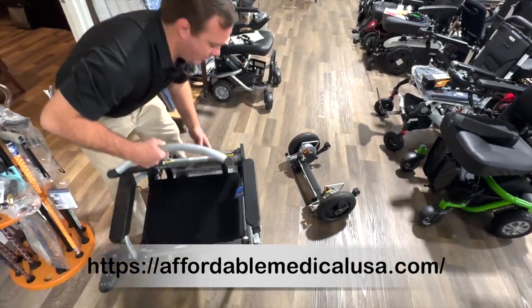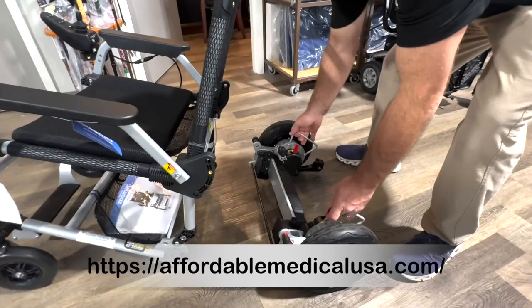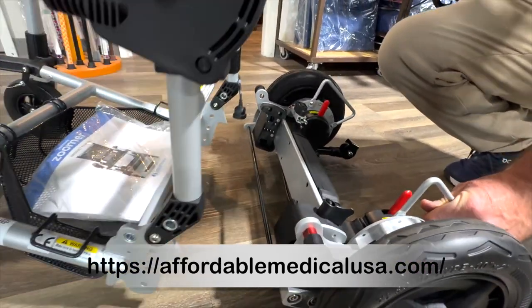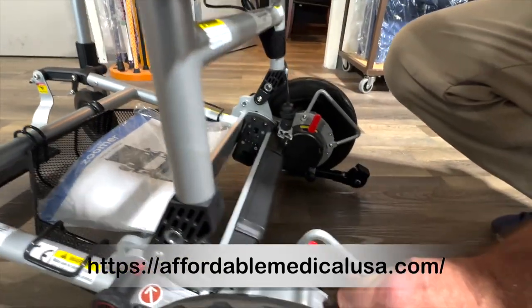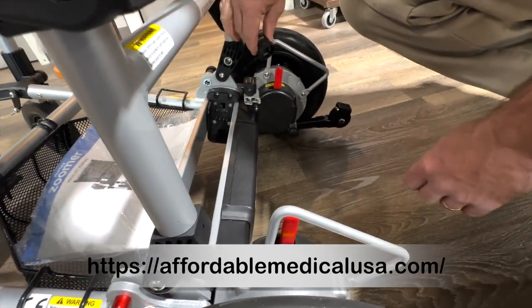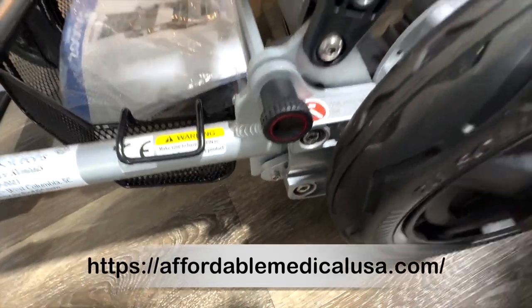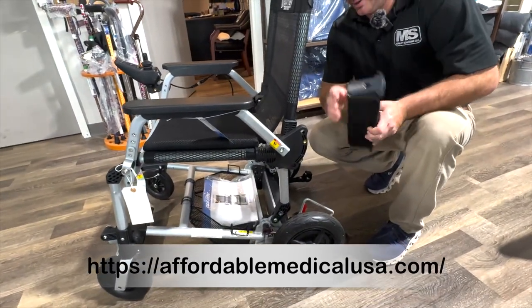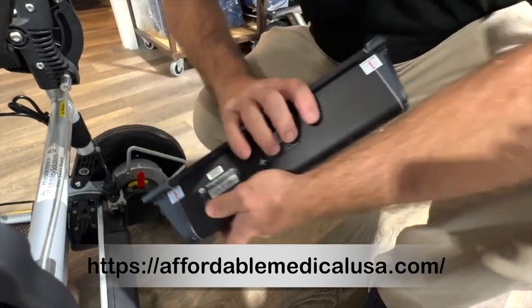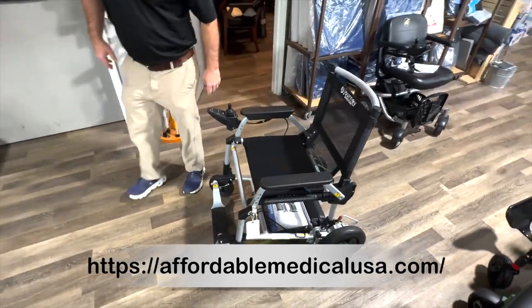Put it back together — pull that. Come over here. Sit this back right here — it almost grabs. Take it back right here — look how it's almost connected. See that? I think they designed it that way. That's pretty cool. Twist this, twist this. Battery back in. See the difference — see the female and the male sticking out. Push that around — boom, ready to go.